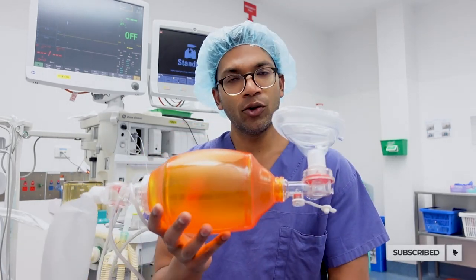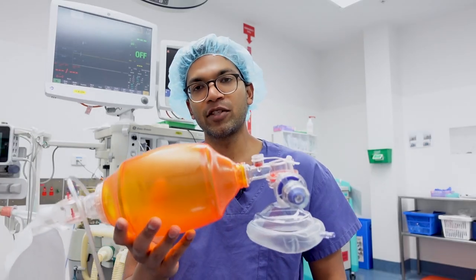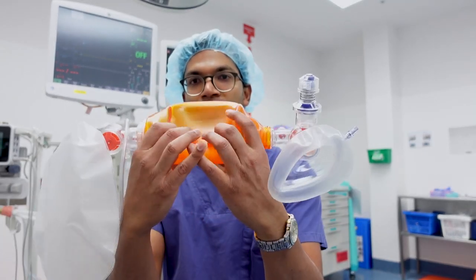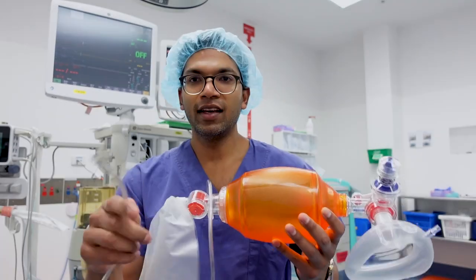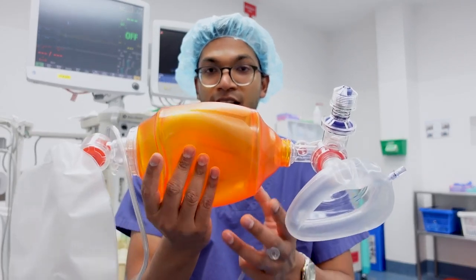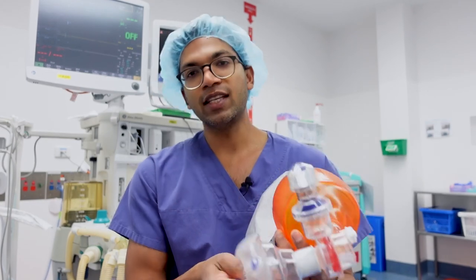This device also delivers positive pressure through a very simple mechanism. The most phenomenal part is that this bag is self-inflating — if I compress it, it just inflates by itself. It doesn't actually need to be connected to oxygen to inflate itself, whereas with my anesthetic machine, this bag requires gas — oxygen, air, or whatever — to inflate. So right there it's not self-inflating, whereas this device is. That's probably one of the most remarkable things about this bag.